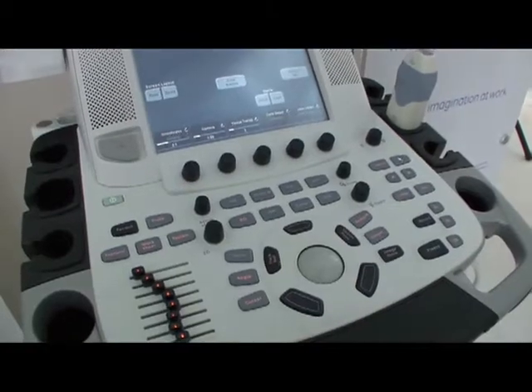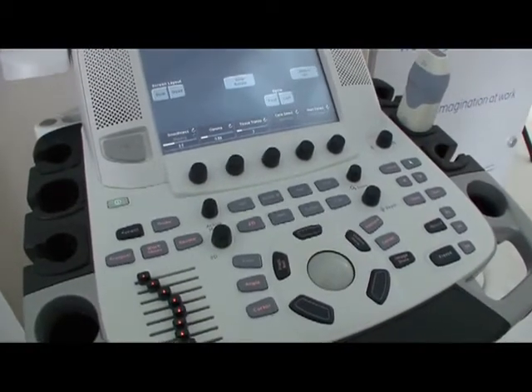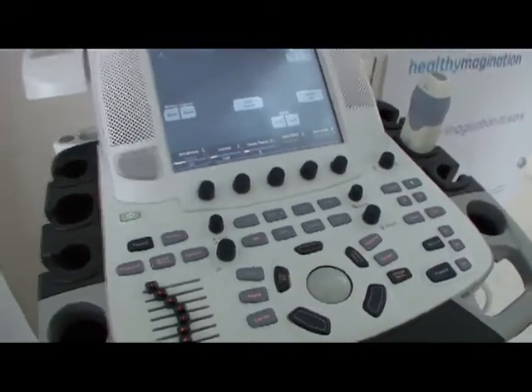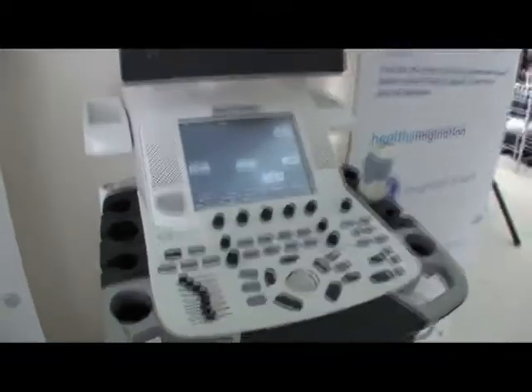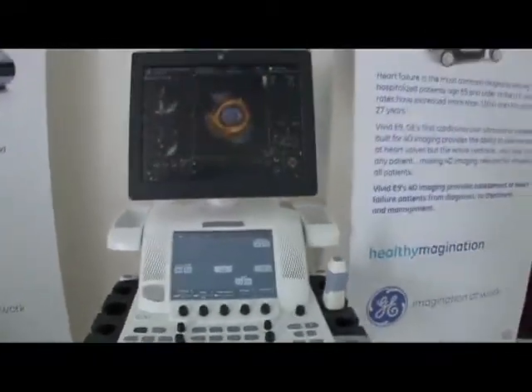Hi, I'm Leanne Dantin and today we're looking at the Vivid E9, our expert series built from the ground up for 4D imaging. The E9 is a diagnostic imaging tool that does cardiac ultrasound imaging and it helps the physician and the cardiac management team help guide treatment for patients with heart failure and different diseases.